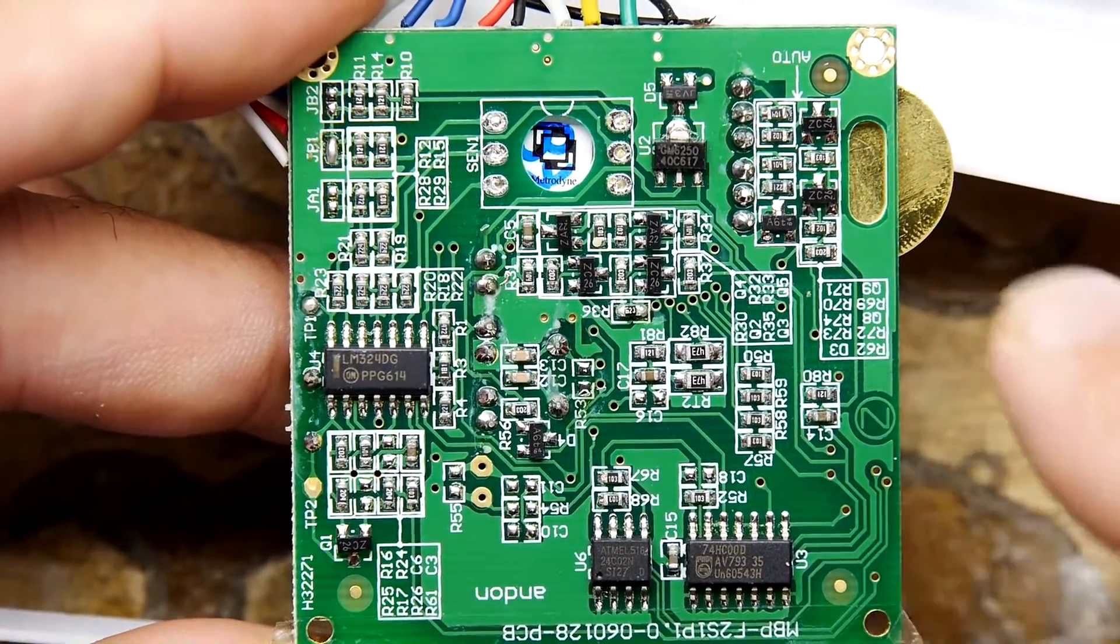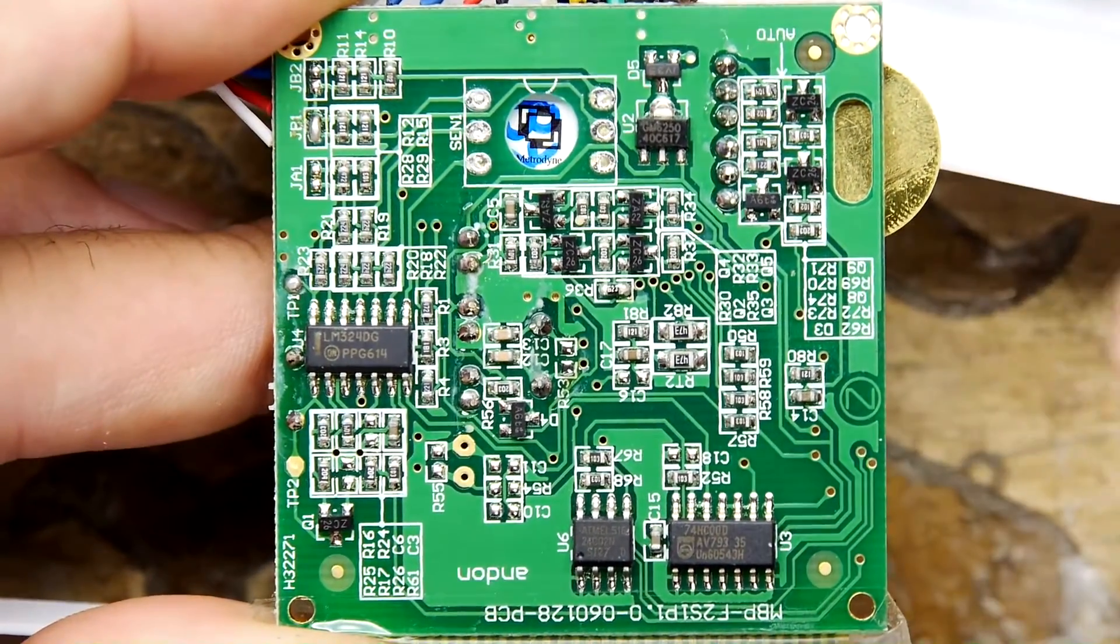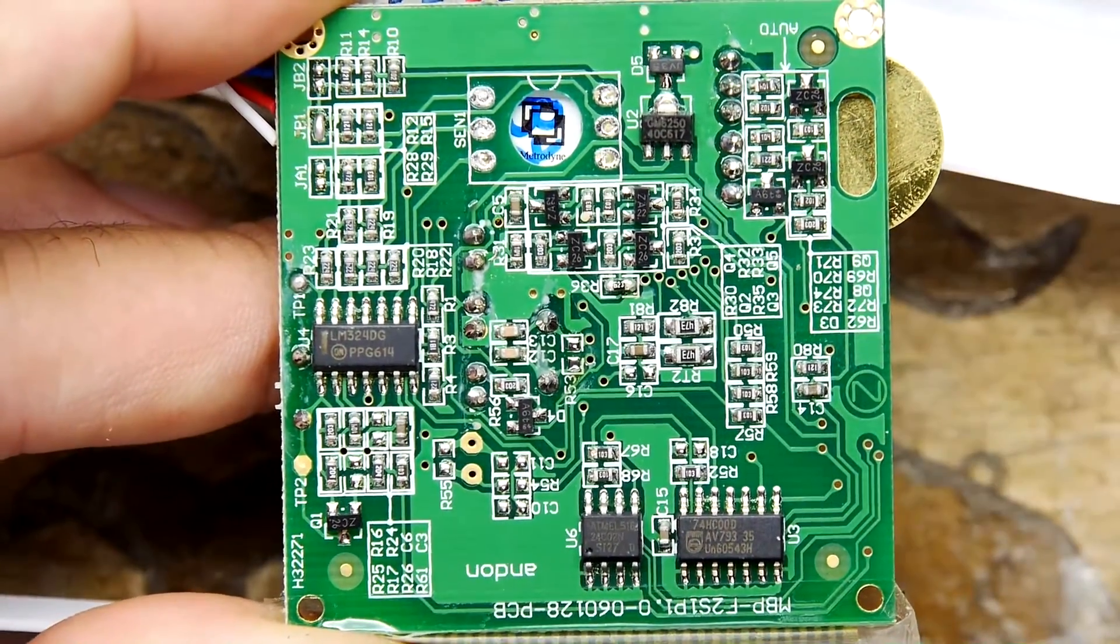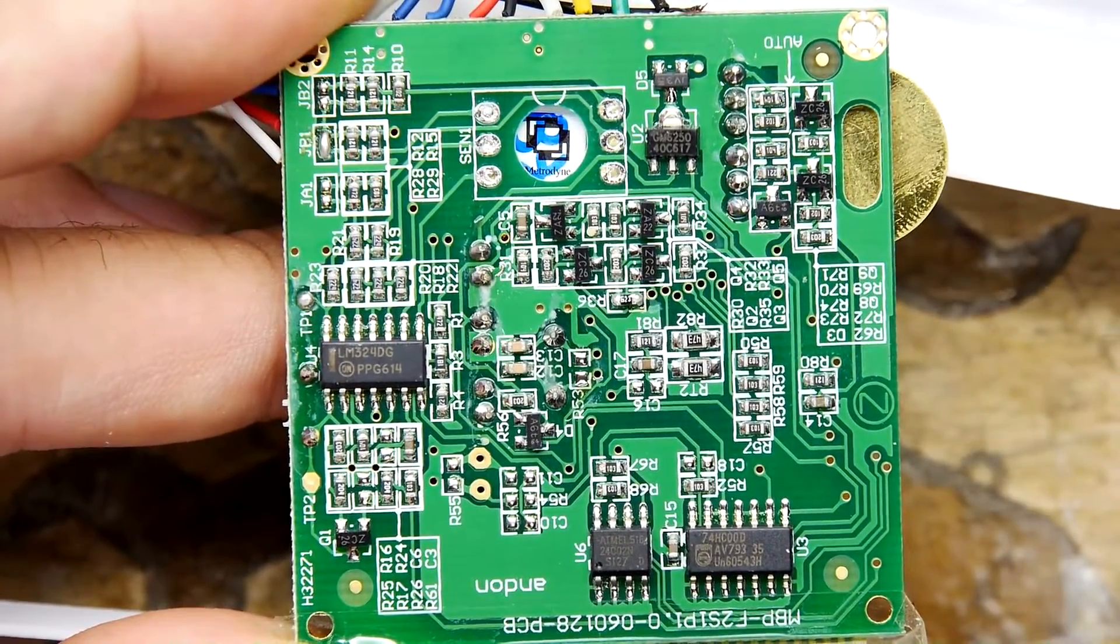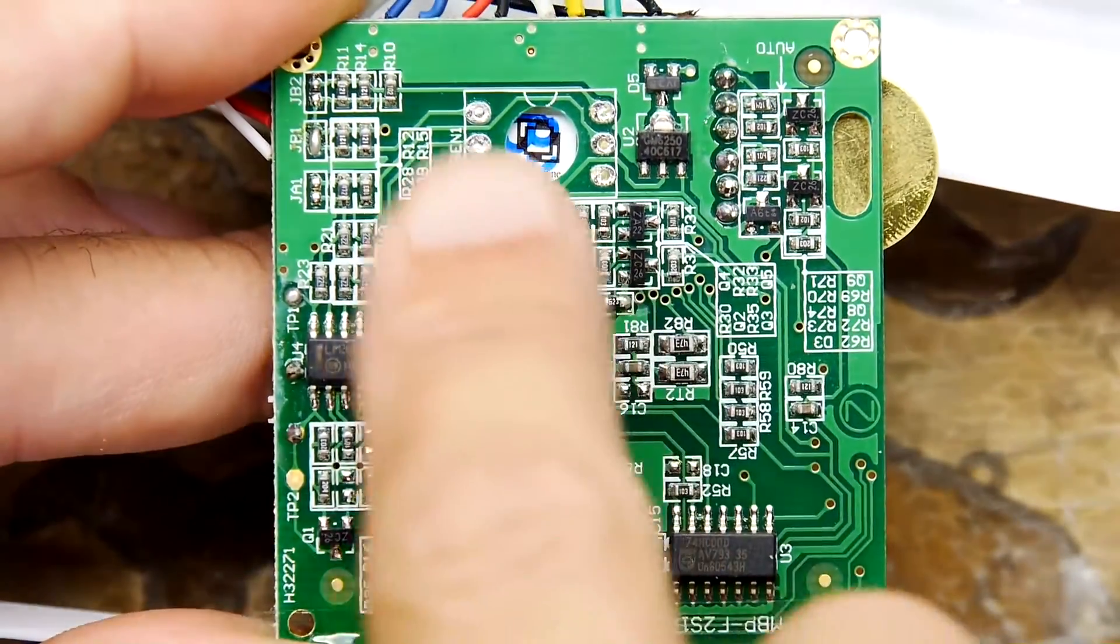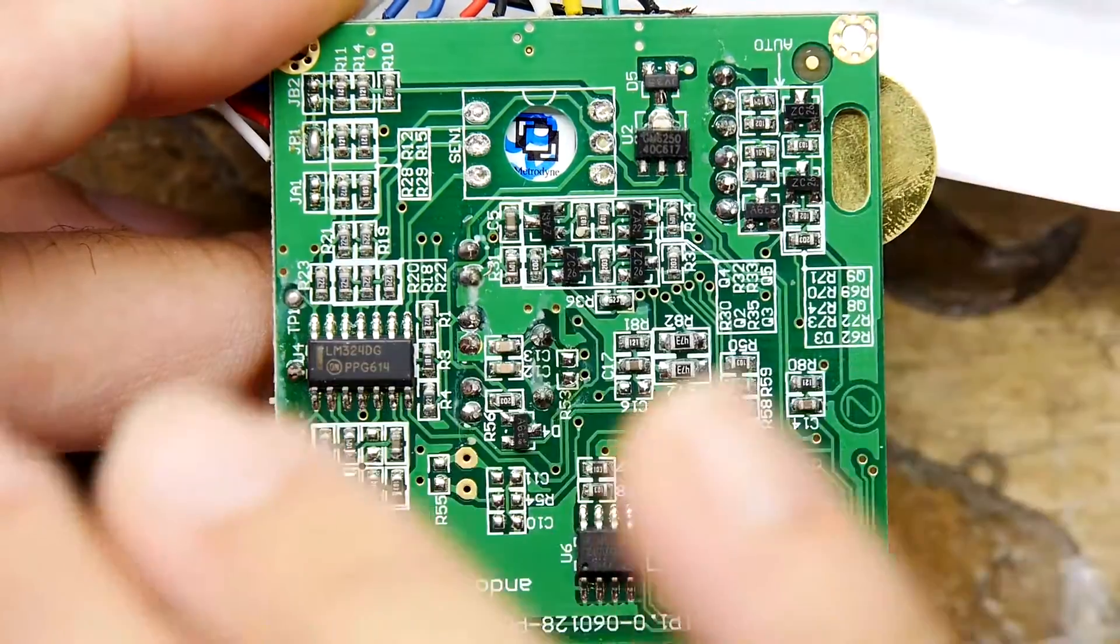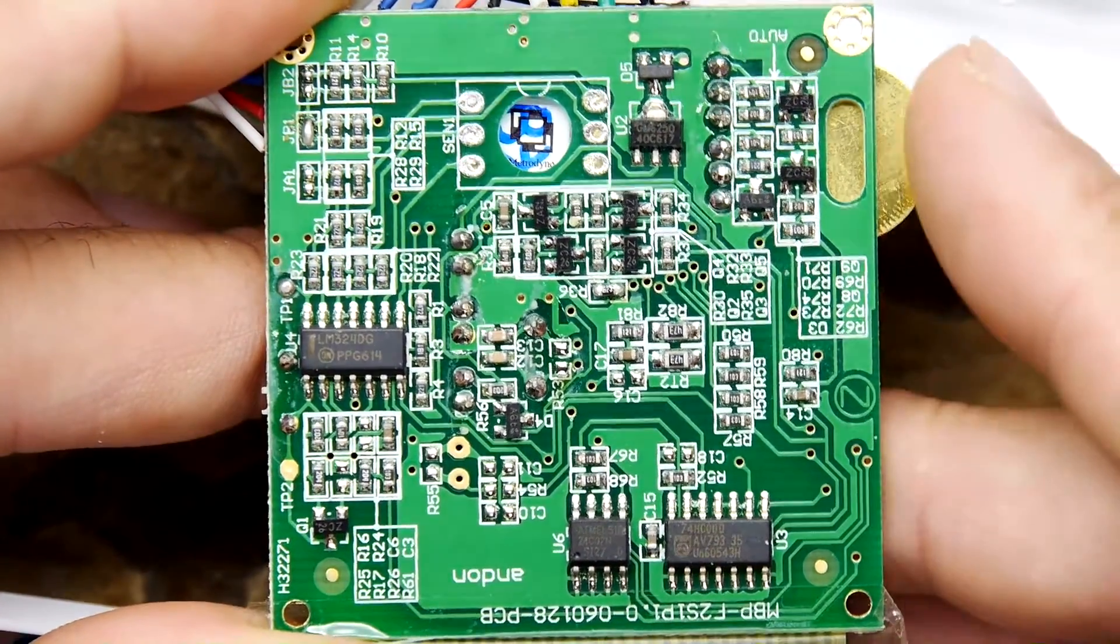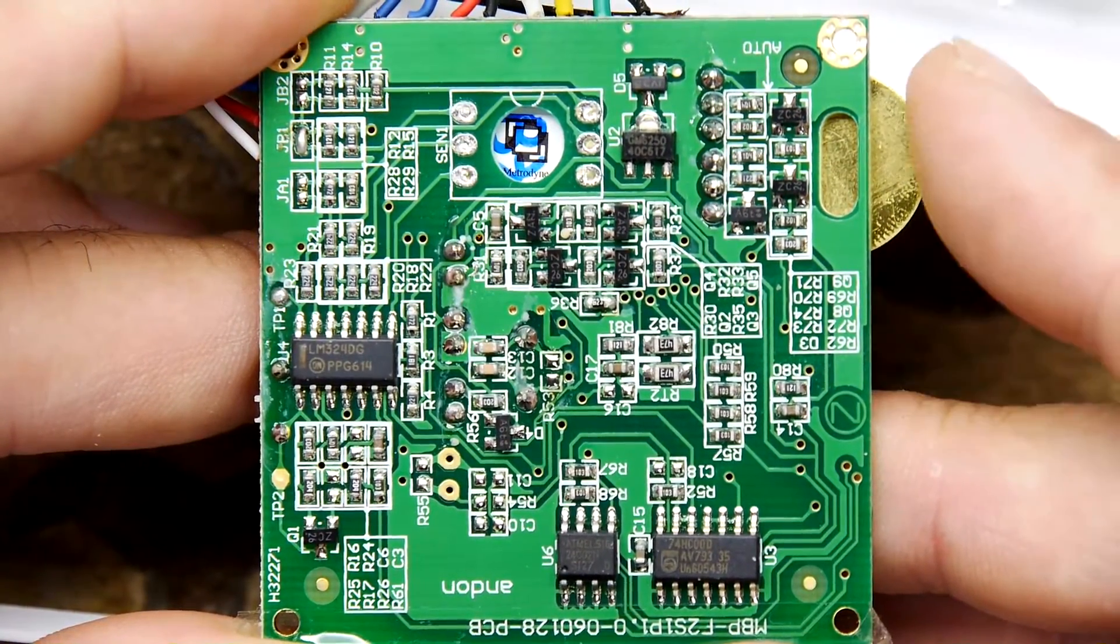Like I kind of see stuff going to these transistors and whatnot. The idea being you might be able to find the first port of call on this board could well be the fuse. So what I'm going to do, I'm going to stop the camera so I can get my head in real close. Because my eyes are feeling sore today. And I'm going to have a quick study through and we'll jump cut back to see if I've discovered anything there.